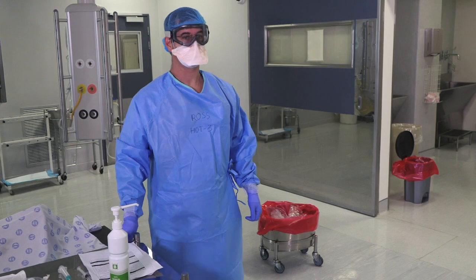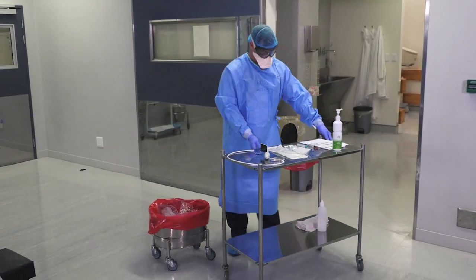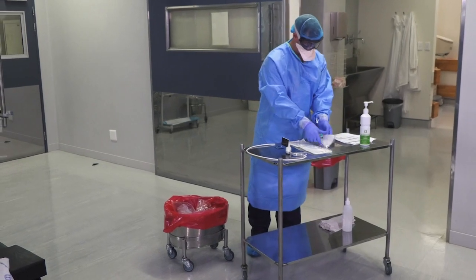Ross, I'm going to coach you through doffing of your PPE. Please move to the red bin and get rid of all the disposables that we've used or have not used.